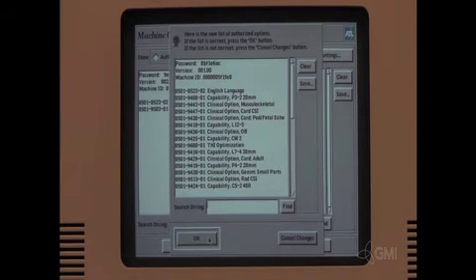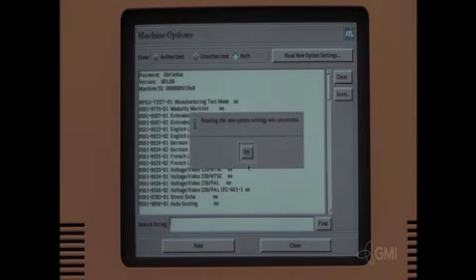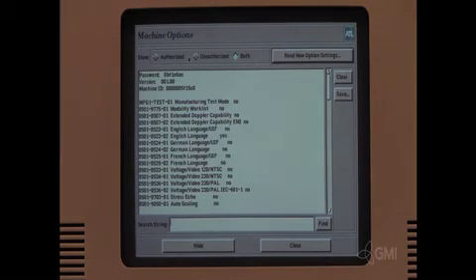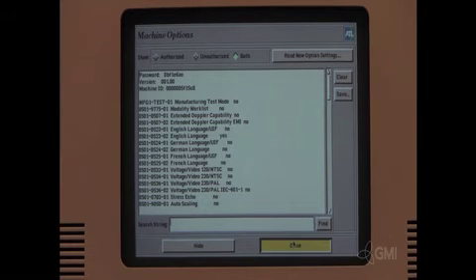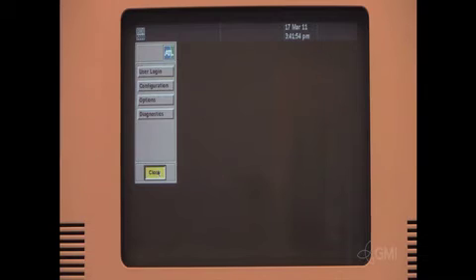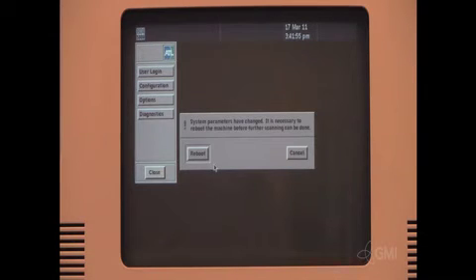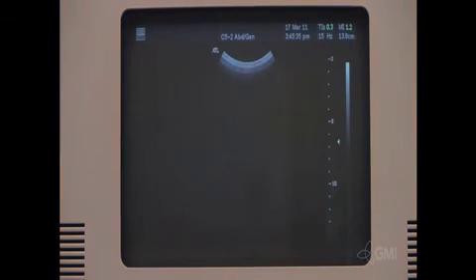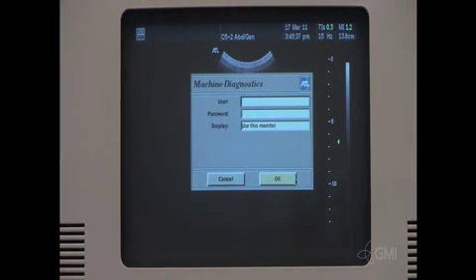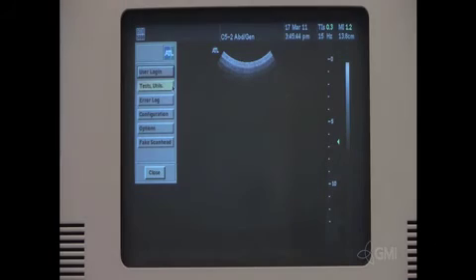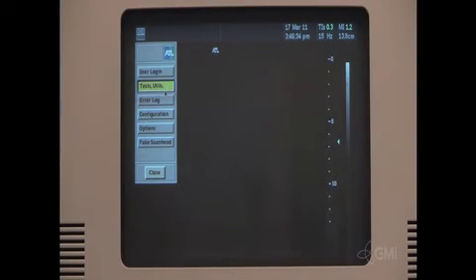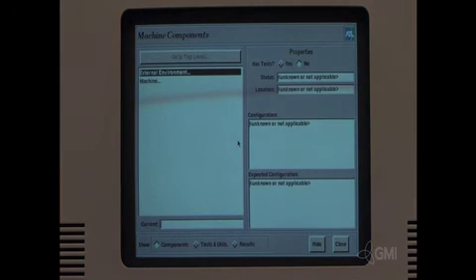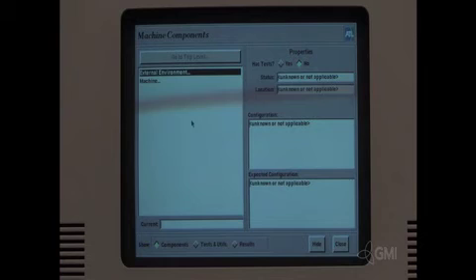Select ok. Select ok. Select close. Select close. Select reboot. The system will eject the backup disk during the reboot cycle. Press and hold super key and hit zero. Select test and utilities. Double click machine.